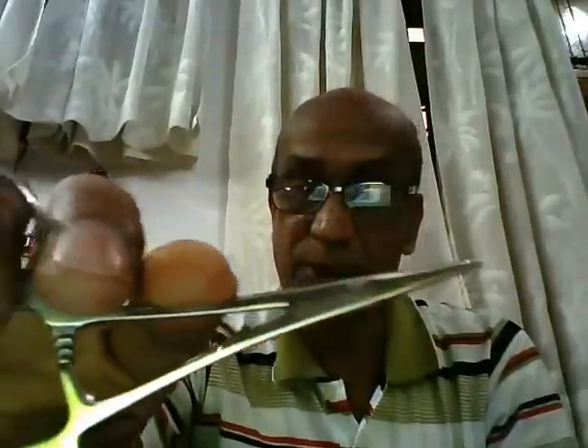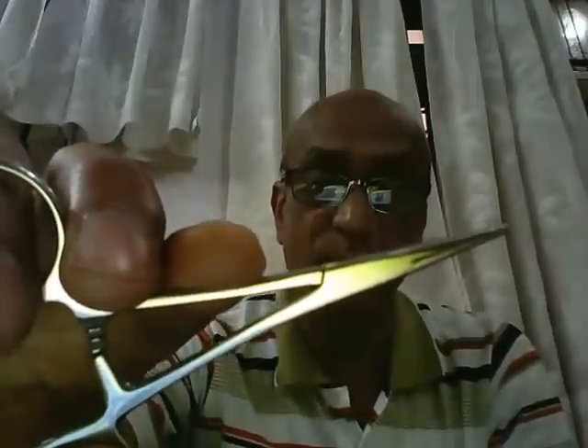So this is a straight artery forcep. We can also have a curved artery forcep. The curved artery forcep is used to hold small bleeding vessels and is therefore also referred to as a hemostat forceps.